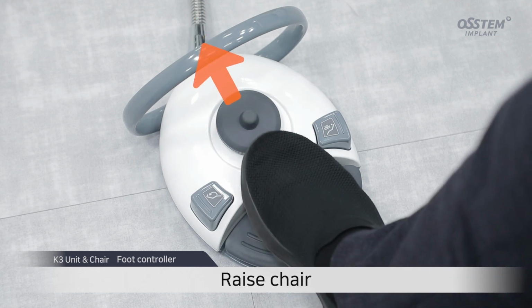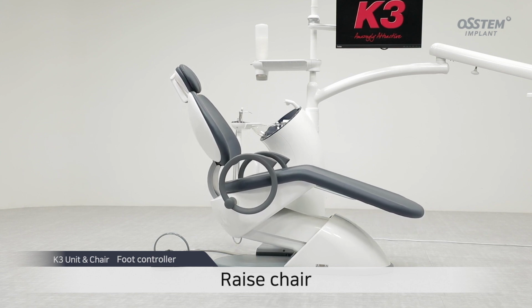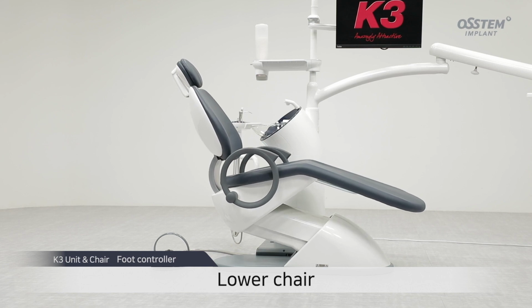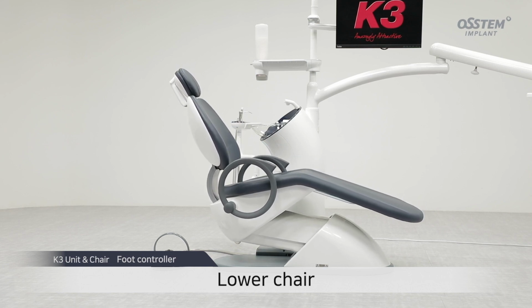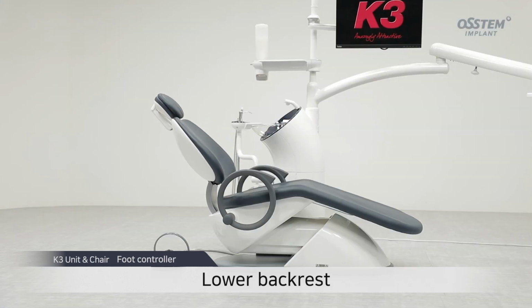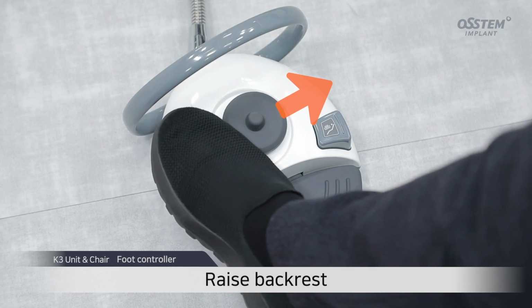Raise chair. Lower chair. Lower backrest. Raise backrest.